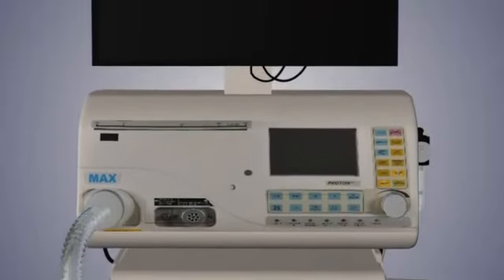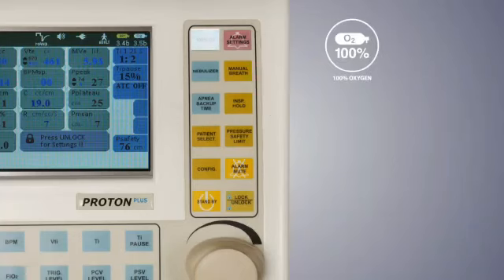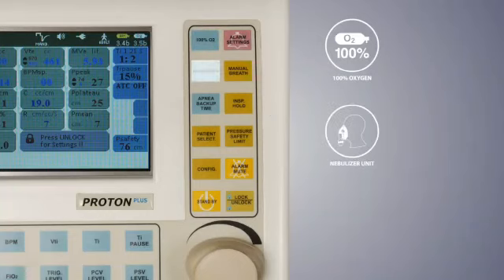100% oxygen delivers 100% oxygen for a set time as per requirement. Nebulizer unit is provided for administering the drug for the set time interval. This delivers the drug during inspiration only, and during expiration it's automatically off to prevent drug wastage and patient discomfort.